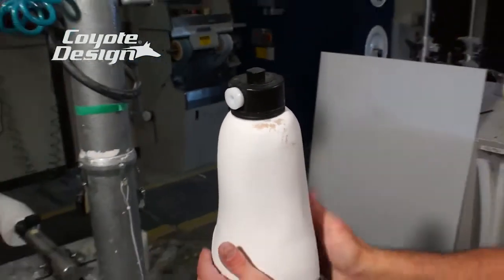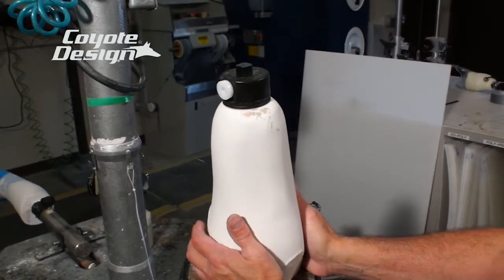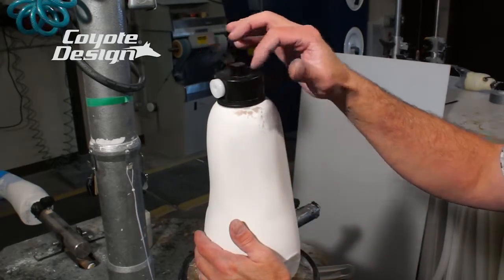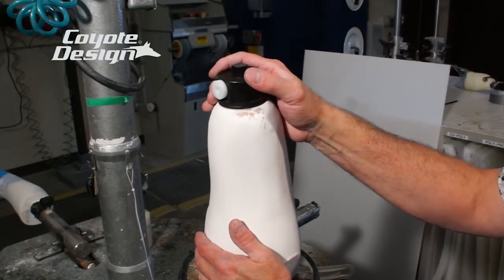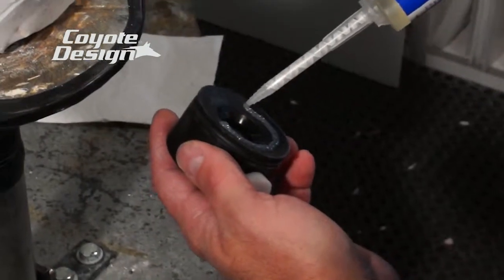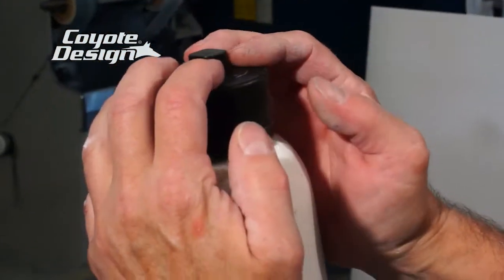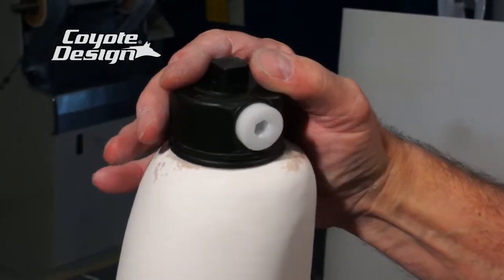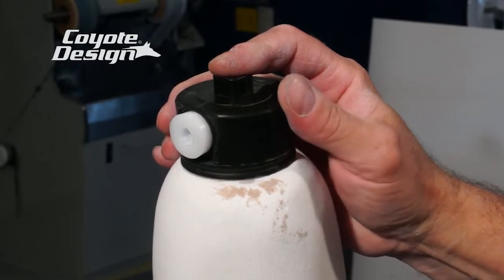This socket we're going to do with just the lock on the end of it and no four hole connector. After the fact, once the plastic is on it and we have our socket, we'll be able to sand the end of it and use whatever type of connector we prefer — whether it be a four hole, four prong, or possibly a three prong. I'm going to put some glue on here to keep that holding still; it makes life a lot easier when it's not moving. We can really get a nice orientation on this medial wall with our button. We brought it even a little more anterior to help them out.